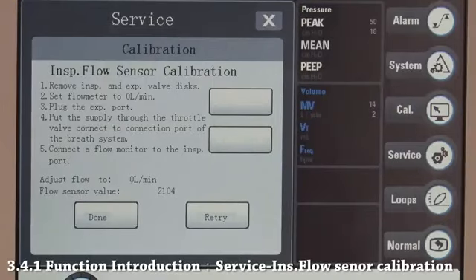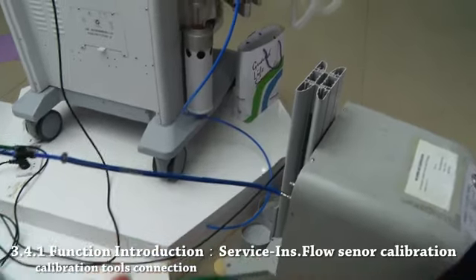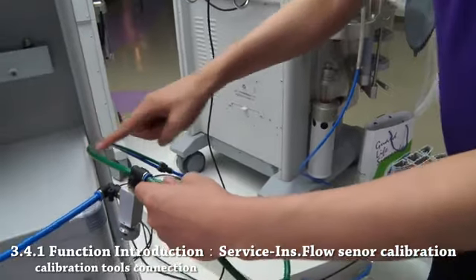To calibrate inspiratory flow sensor, follow the instruction on the screen. Here we can see steps 4 and 5, and here it's displayed how the calibration tools are connected.